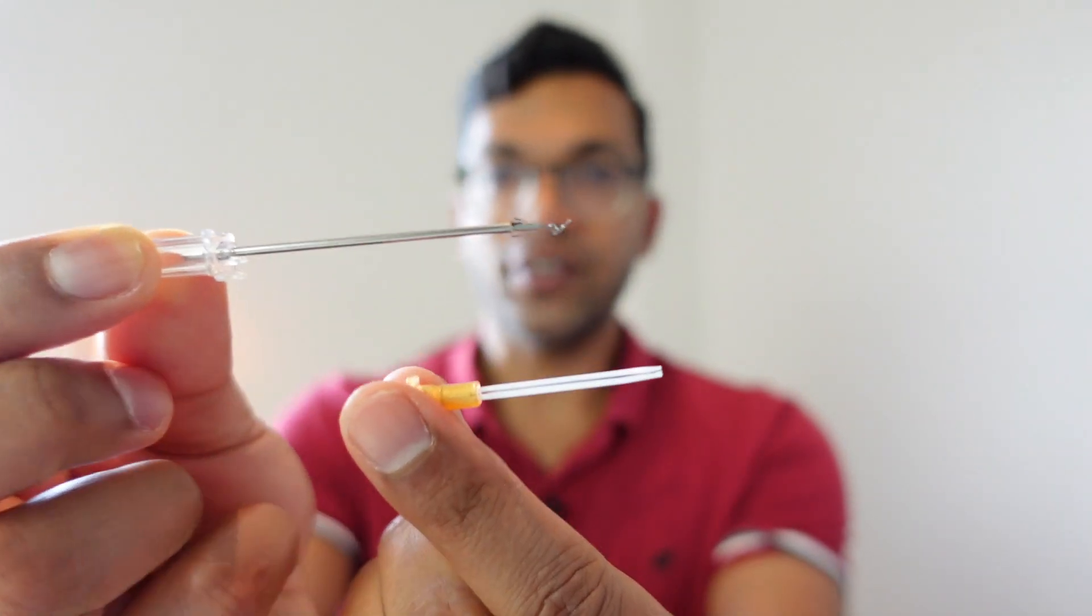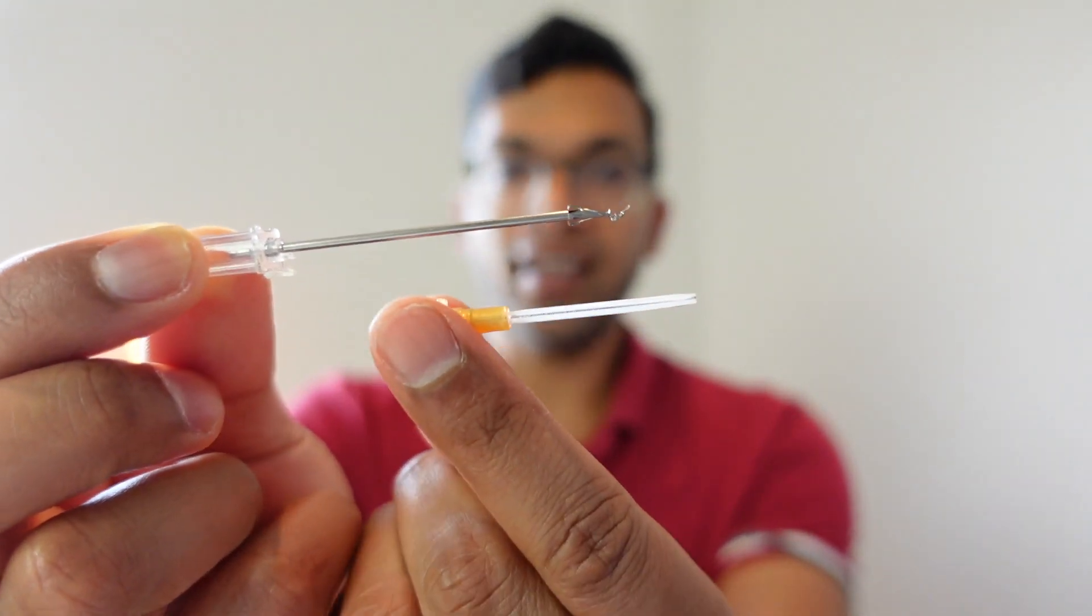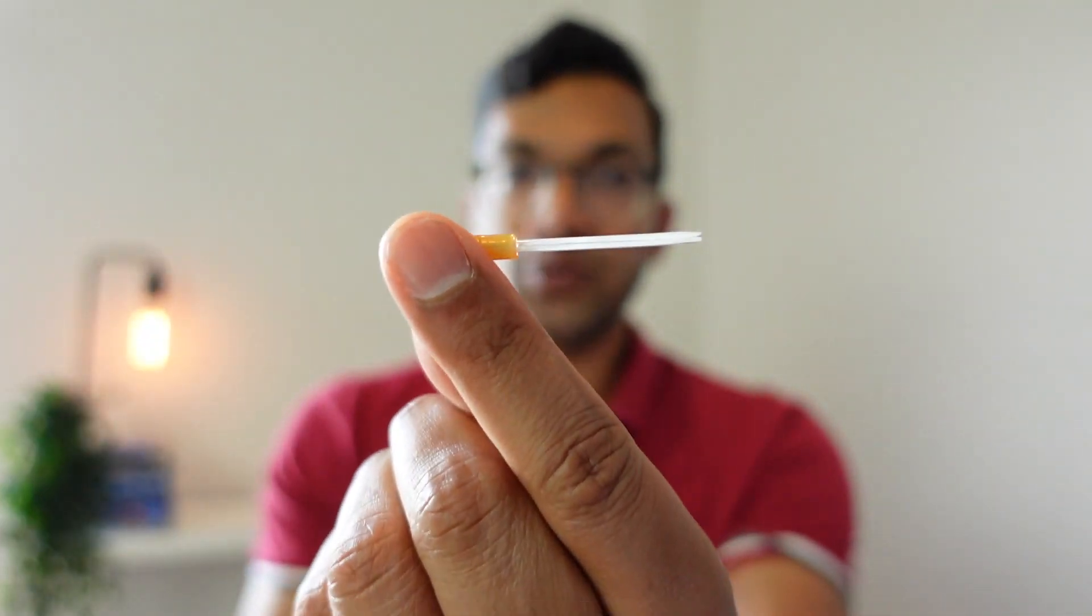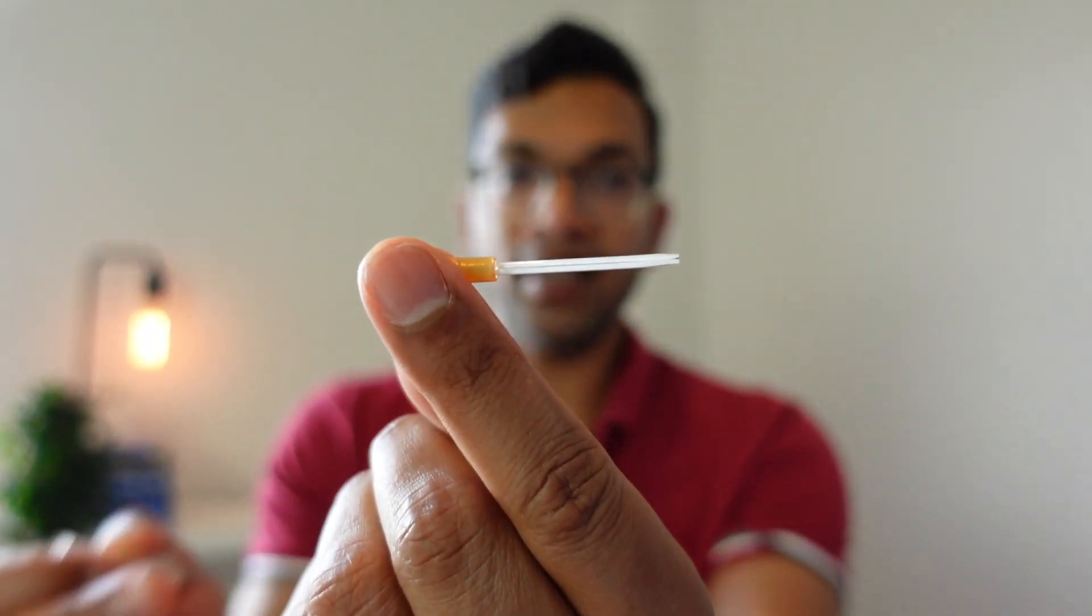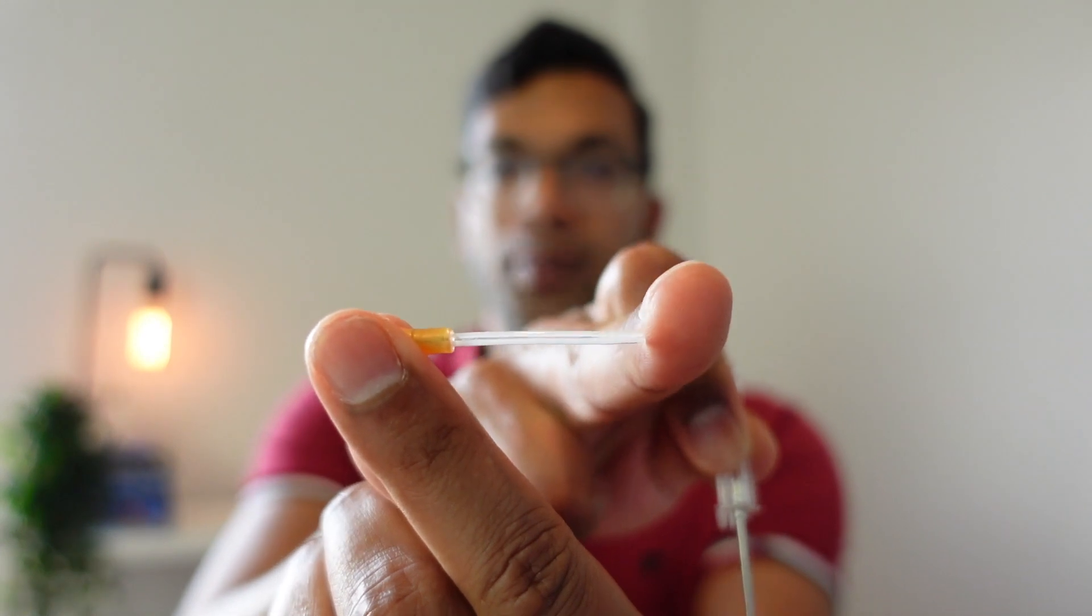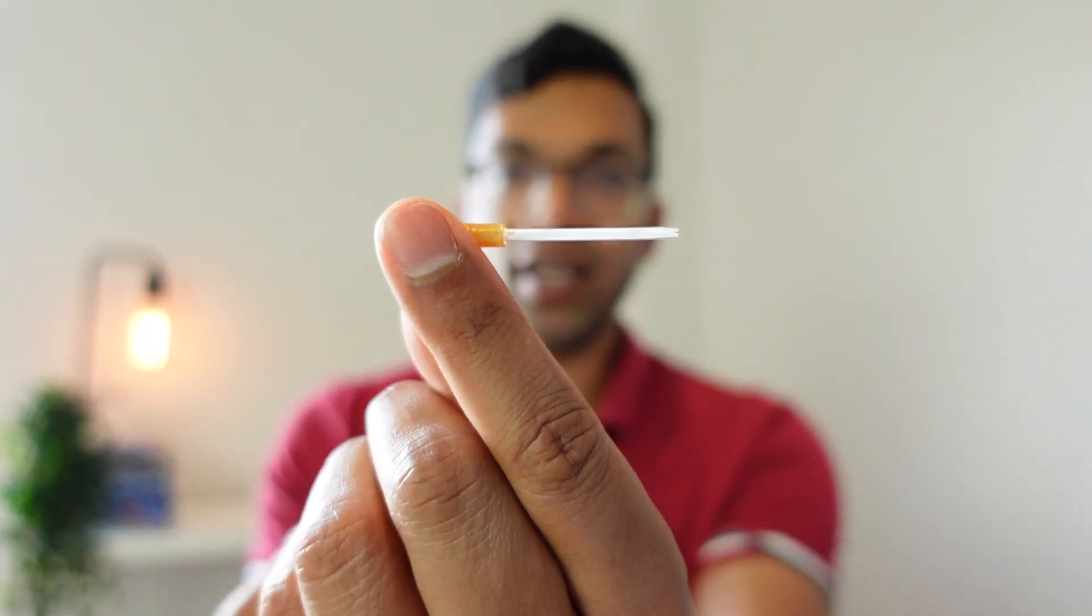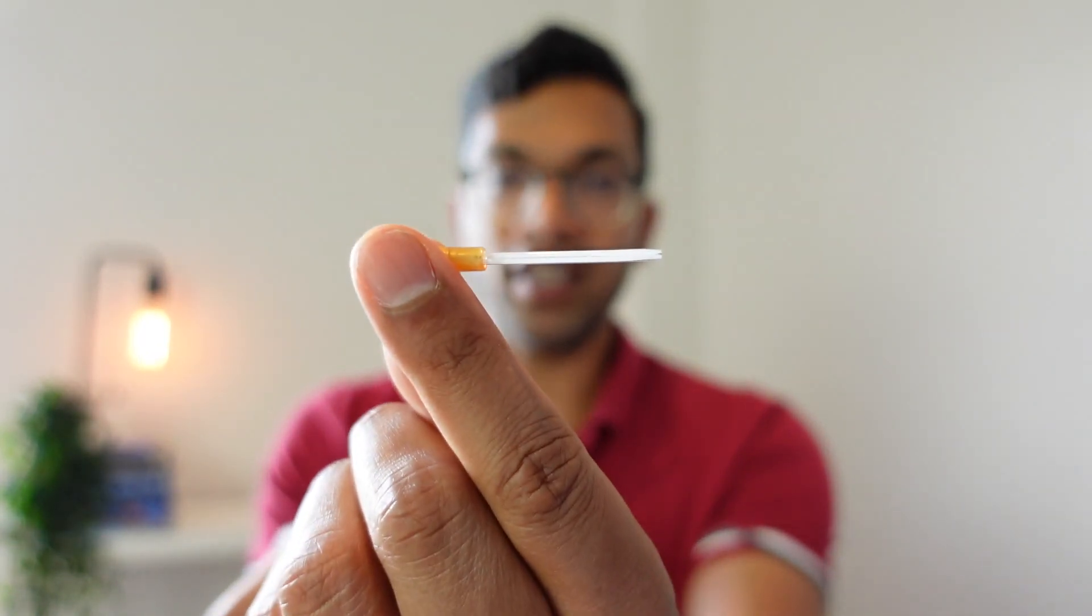So that's what it looks like if I take it apart. So you've got your safety needle there and here is the plastic cannula that's what stays in the vein. It is not sharp, and that way you can give drugs, fluids, whatever you need to, and it stays inside the vein.